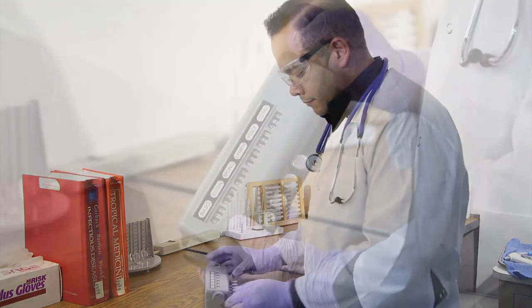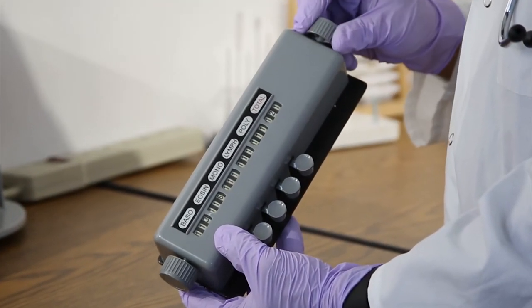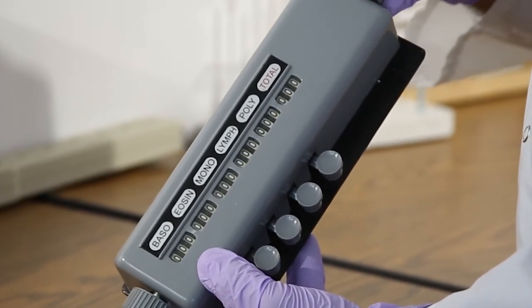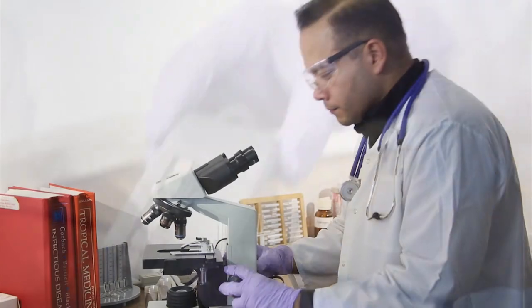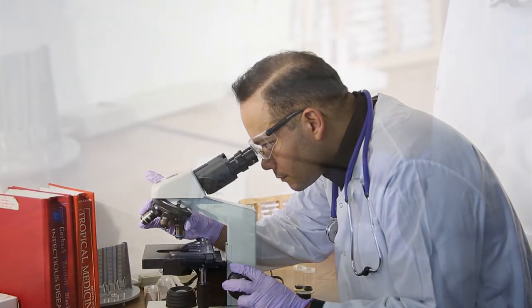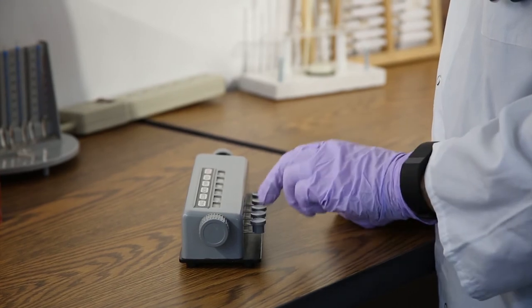To operate, you must first zero out any numbers visible on the counter by cranking the large knob on either side of the counter and turn toward you until all digits read zero. Examine the sample and push the button for each type of leukocyte observed. The total cell count accumulates at the right.